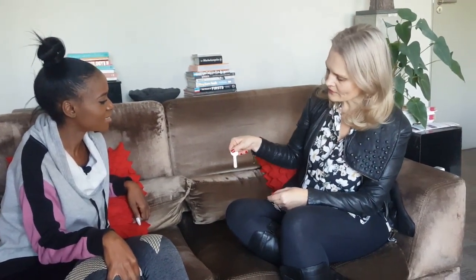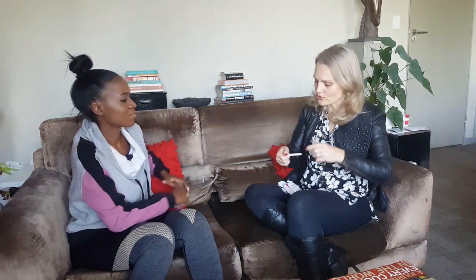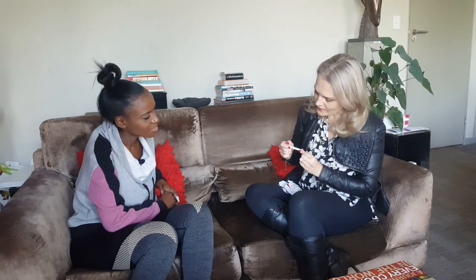You take this and put it into your vagina as if it's a tampon, more or less, but not as deep — you keep your fingers on the corrugated part, that's how you know where to hold it. Then you go into the vagina and swirl it around a little, keep it in there for a while. If you have a discharge it will go straight onto the strip; if you're very dry it might be more difficult to get vaginal fluid onto the test strip.